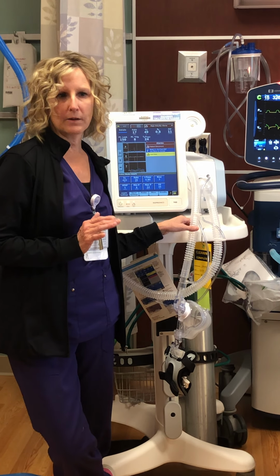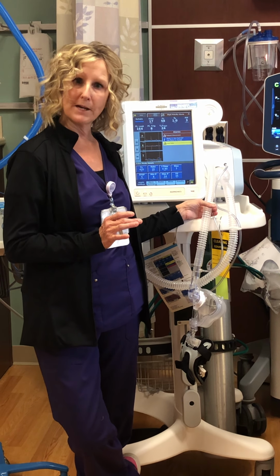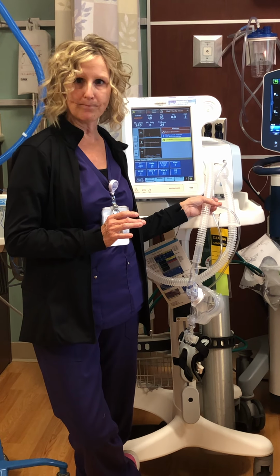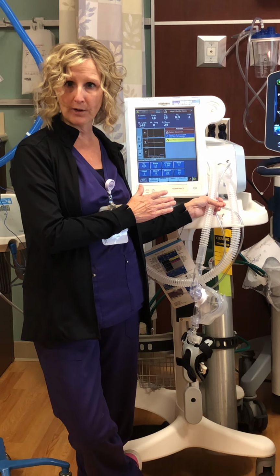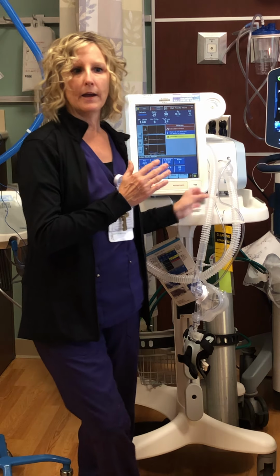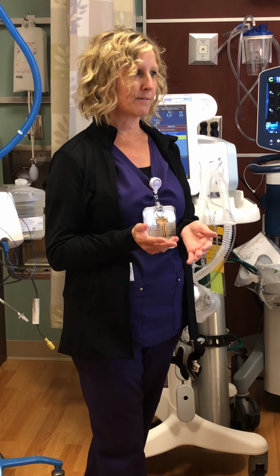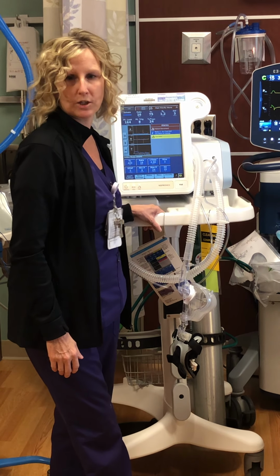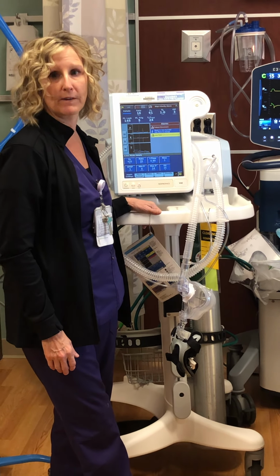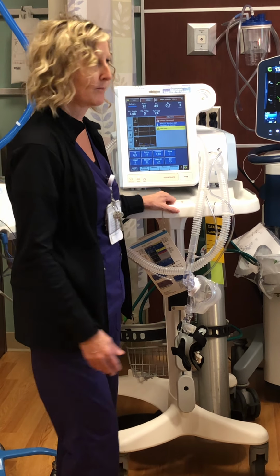In the policy, there is something that states, primarily for ER, or if a patient's mental status is changing, we can put them on for like a 30-minute time frame, get a set of blood gases, look to see if we're improving. If not, this is not the choice for us. The patient would need to be evaluated and then probably intubated and put on the ventilator.